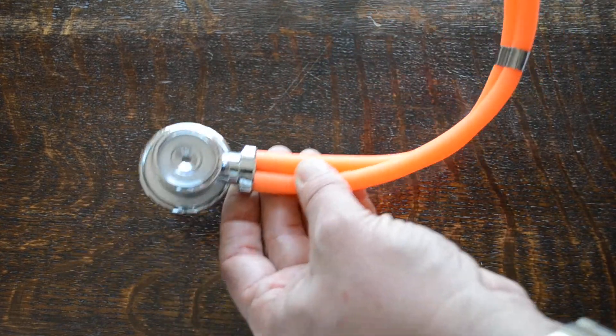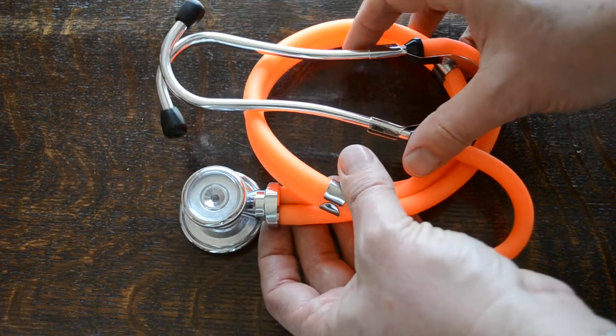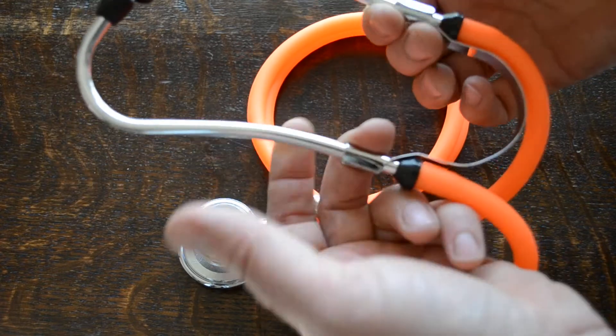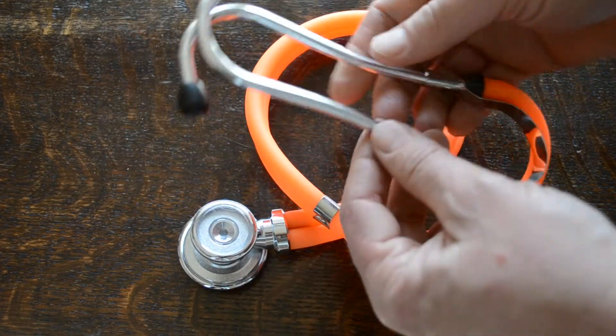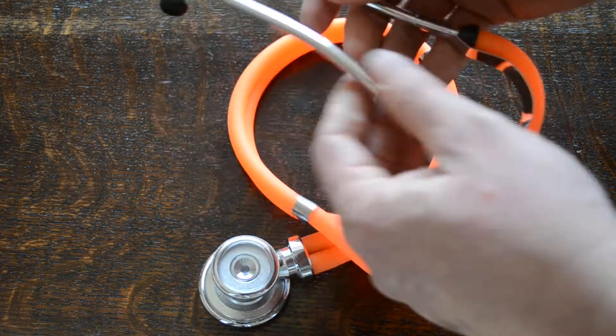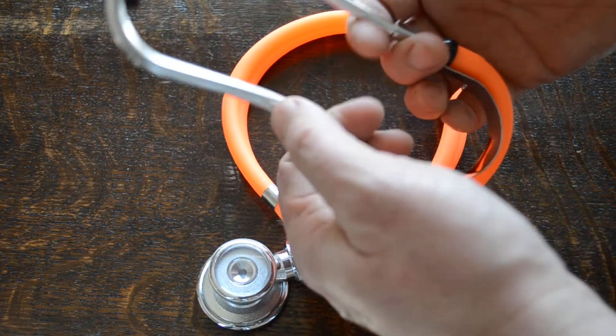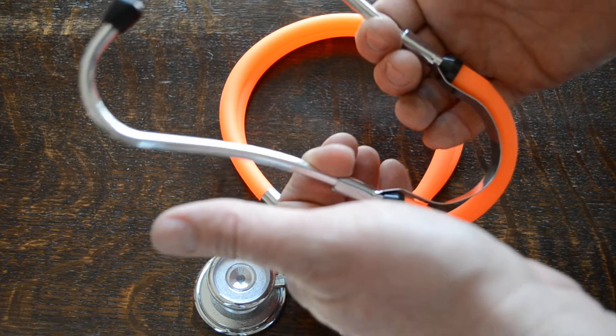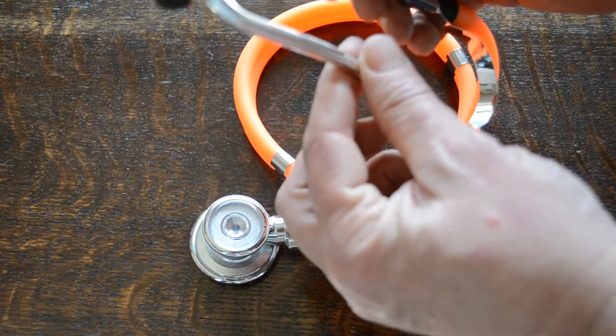Standard 56 centimeter adult length tubing. Makes it very easy to use. A nicely sprung headpiece. Comes fitted with the hard medium size ear tips. The springing on this is quite nice. Not too hard, not too rigid and it's light as well, the headset.